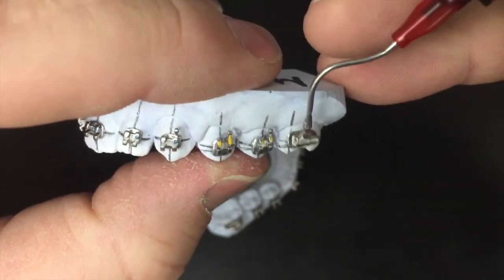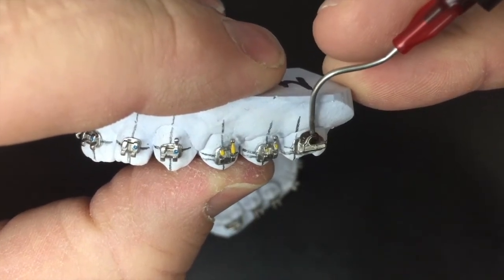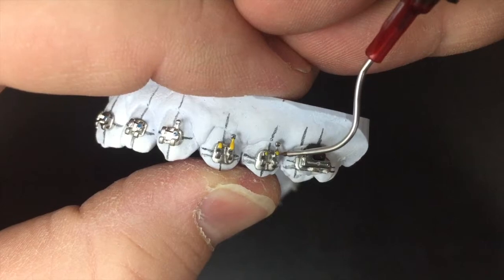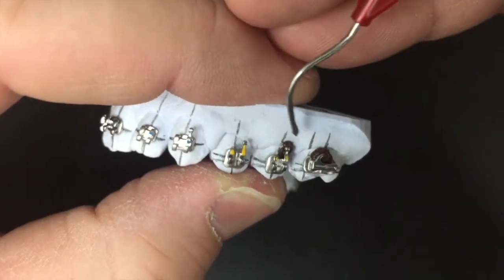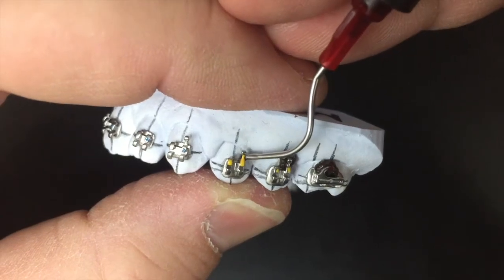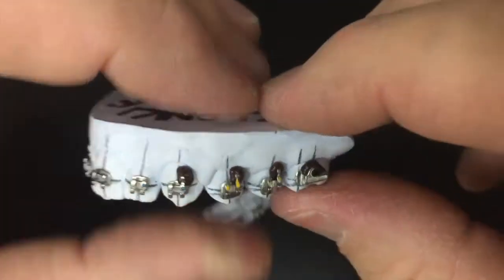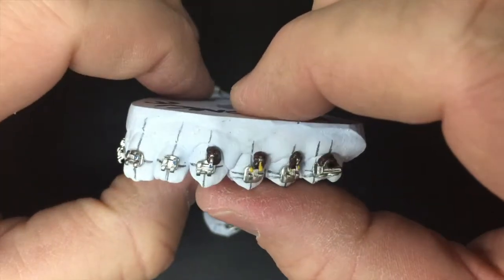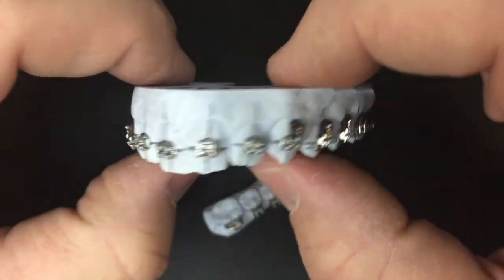It only takes maybe an hour to dry the frosting hard enough to be able to make the tray. You may notice this is a different model than in the first section of the video. I do anywhere from 8 to 12 trays at a time depending on their due date, and I try to get a whole stack of them before I break all the equipment out — it just saves time to do them all at once. Those hooks are filled. All we'll do is place it in front of the fan, let it dry for an hour, and then move on to making the rest of the tray.